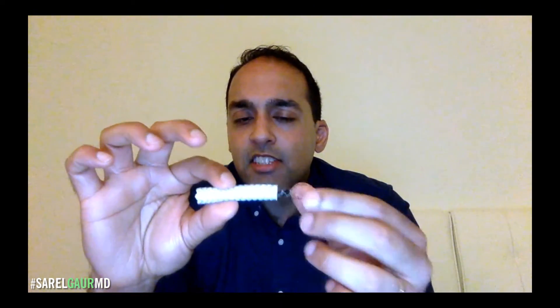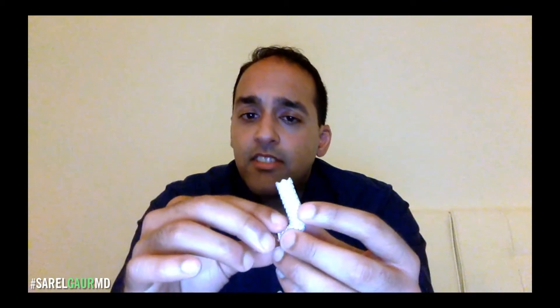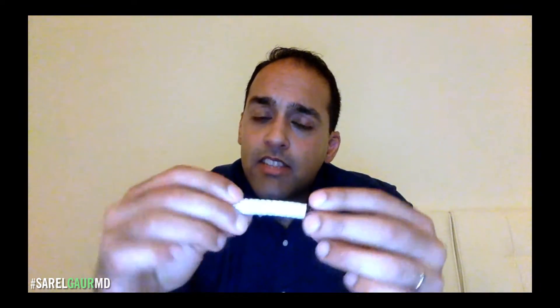What is this stent made of? The entire stent is made out of nitinol — it's got a nitinol skeleton. The covered portion is covered with what's called ePTFE, which stands for Expanded Polytetrafluoroethylene. On the covered portion, it's got ePTFE on the inside and ePTFE on the outside, with nitinol as the skeleton. ePTFE is basically a very slippery, smooth, fabric-like covering — it's actually the same stuff that's in jackets, very similar to what's called Gore-Tex. It's made by the same company as Gore-Tex — it's made by Gore.